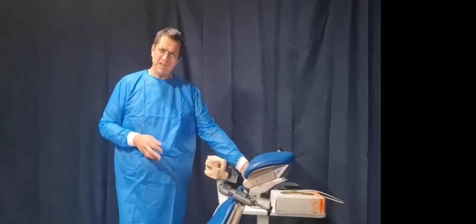I hope that helped you. If nothing else, it shows you the possibilities, because these are real life cases that I've done, and I can attest that this is the reason why I got a scanner. We'll recap a bit more in our debrief and question time with you, Joe. But for now, these are very important cases that can show you some techniques that will get you scanning and will save you so much time. I have done some cost-benefit analysis of the time and materials I've saved, and it's actually very meaningful. It'll pay off your scanner in no time.